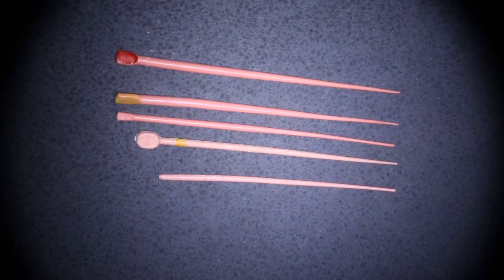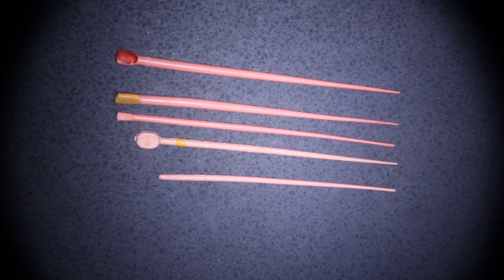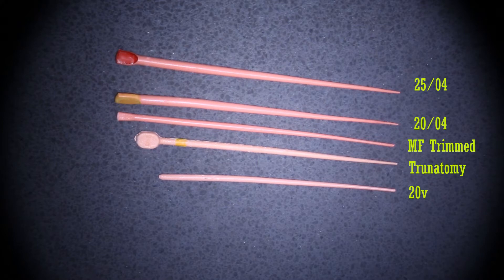So what are our alternatives? Well, as you can see here in this slide, there's a number of different cones that are available that we can use to make this work. As a result of this, using a 4% cone to obturate a DC taper prep is not possible unless you pre-flare the orifice using an orifice shaper or similar instrument. And if you do this, you can continue to use a 4% cone and will likely not have a concern.